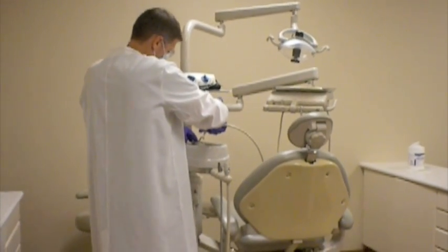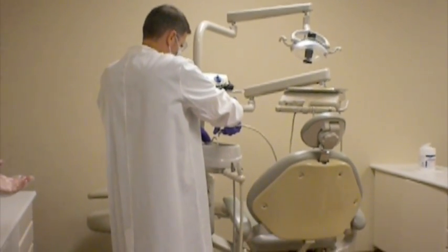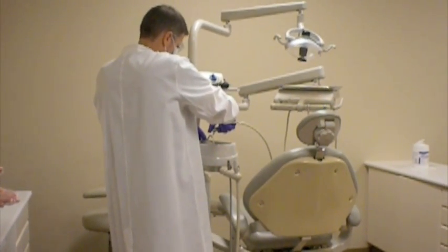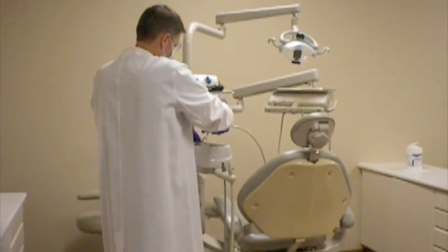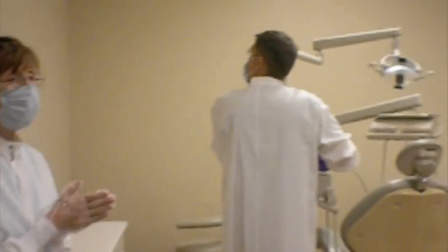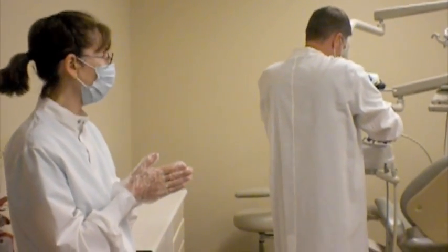When the water sits and remains stagnant overnight, or it could be, in this case, this unit may not have been utilized since the end of June, you're building up quite a bioburden in the lines there, so you want to make sure that you're flushing them so that the water that you're utilizing for your patients is clean, flowing water. So that's a 2-minute sequence, and it takes a while to do that, but you will find that it is extremely necessary and important for you to accomplish that.